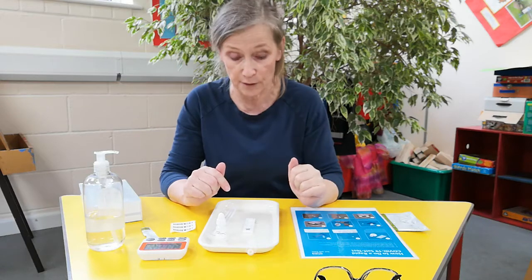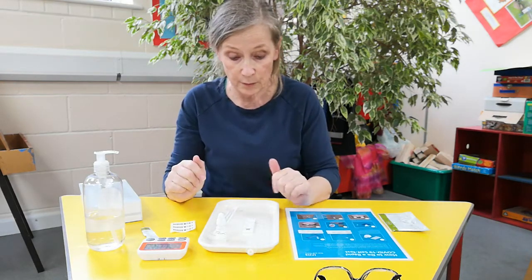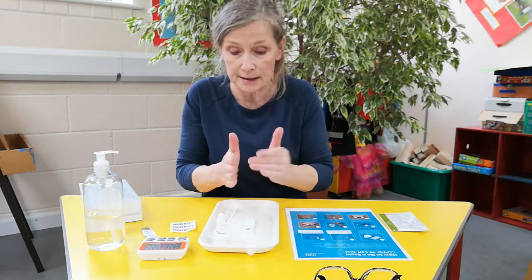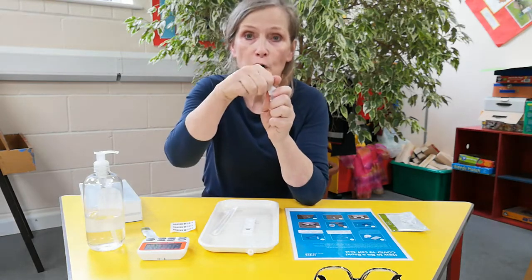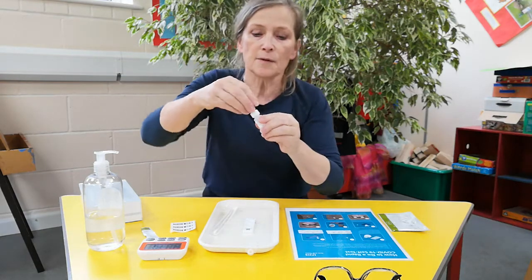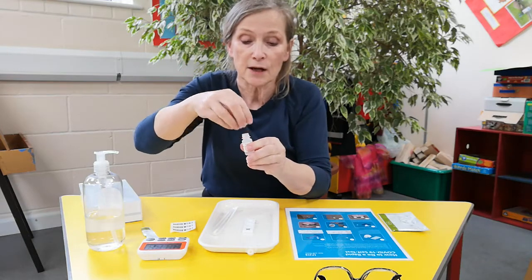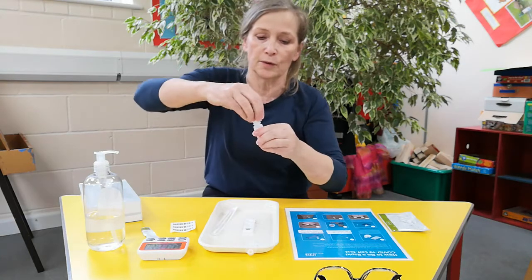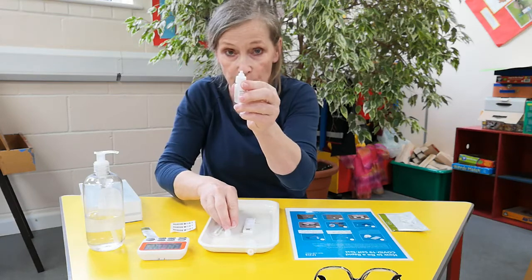Hopefully that'll be negative at your 30 minutes. So to start off with: you've washed your hands, you've got all your equipment out with you, you've tipped this out, you've checked it, and you've got it lying flat — it needs to lie flat. Your buffer fluid: make sure you take the small top off it so that you've got the nozzle. Some of them, if you take off the whole thing, you've now got an enormous hole and we need to put six drops in — so that's not going to work. Just make sure when you take the top off, you've got a nozzle.